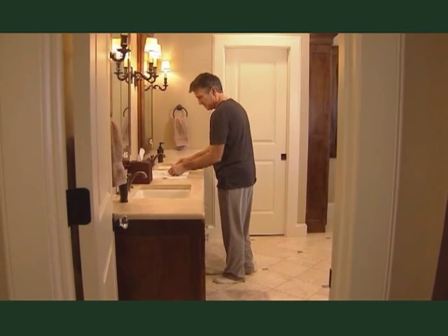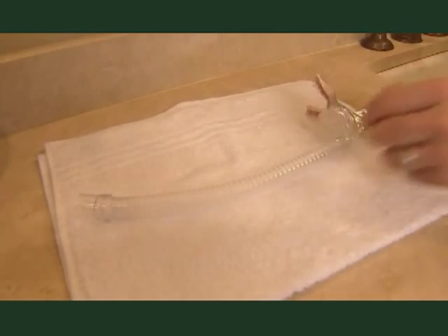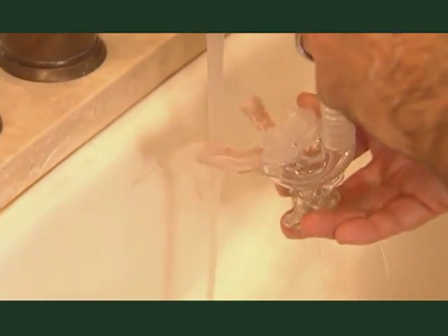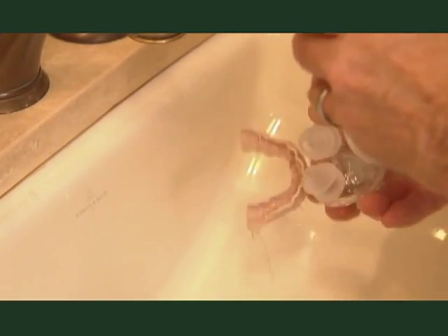Cleaning your TAP-PAP nasal pillow mask is easy. Under normal conditions, it is recommended that after each use, rinse the mouthpiece with cold water. Do not use hot water in any part of the cleaning process, as this could alter the fit of the mouthpiece. Wipe off the pillows of any residue with a damp cloth.